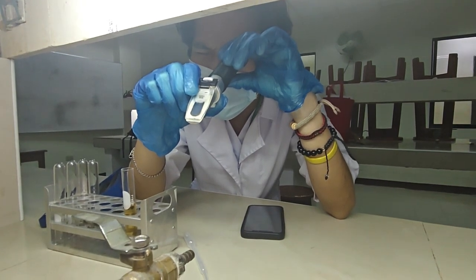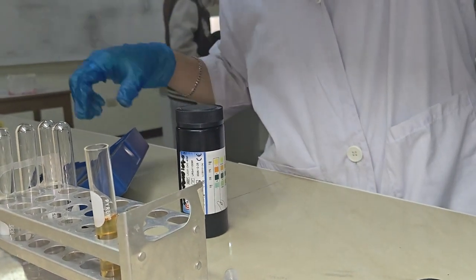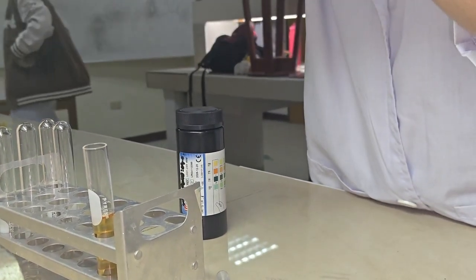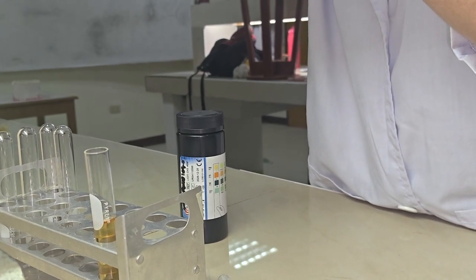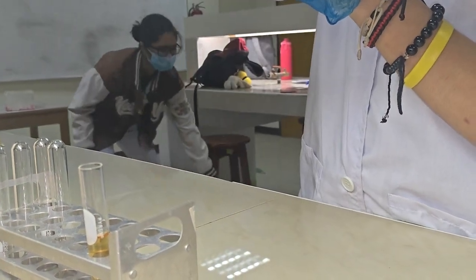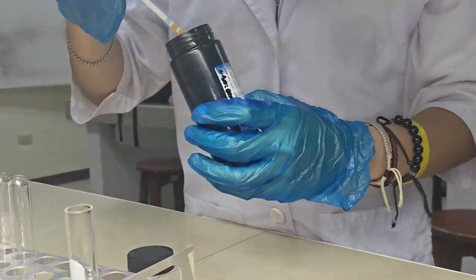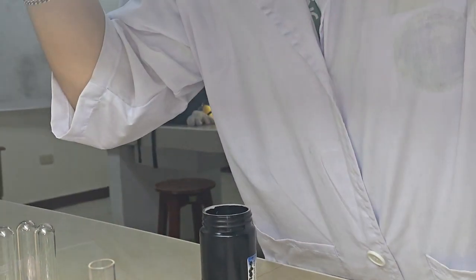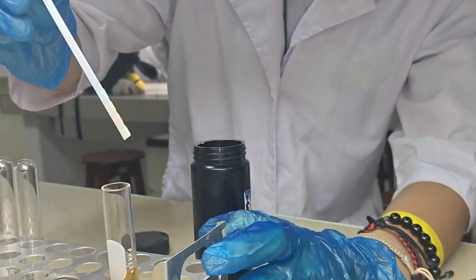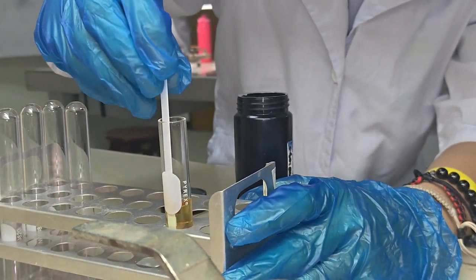Since glucose is negative within the sample of the urine, it is indicated that kidneys are healthy and are efficiently filtering and reabsorbing glucose back into the bloodstream rather than releasing it into the urine. A negative glucose result may also mean that your blood glucose level is within a normal and healthy range, which is usually below 160 to 180. A positive presence of glucose within the urine sample may suggest that a person has diabetes.